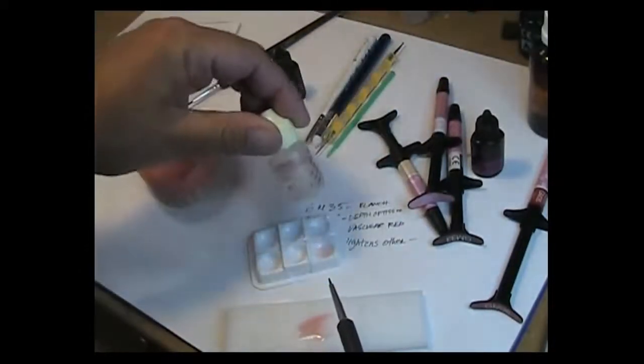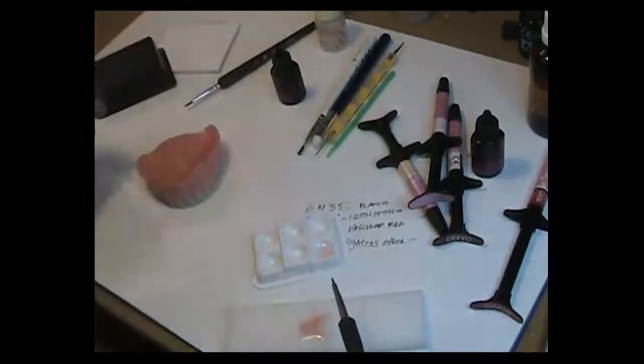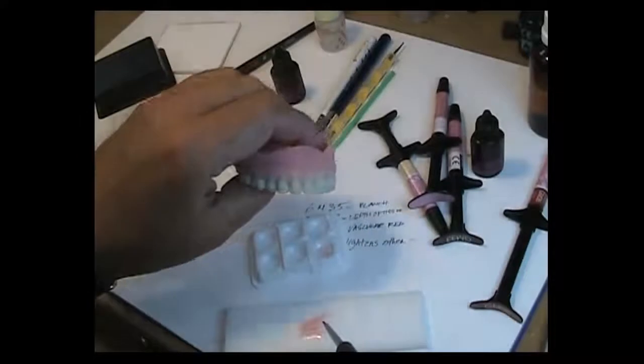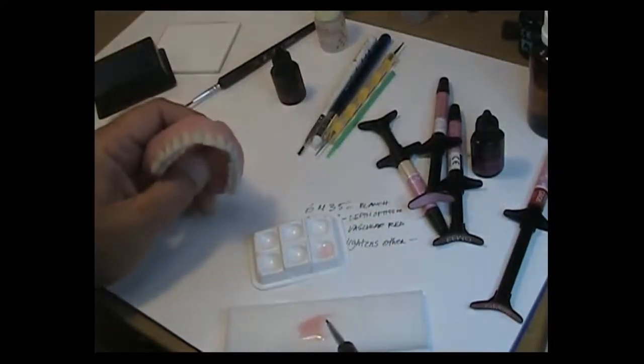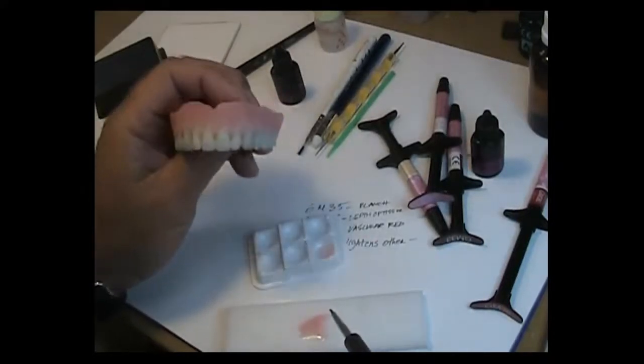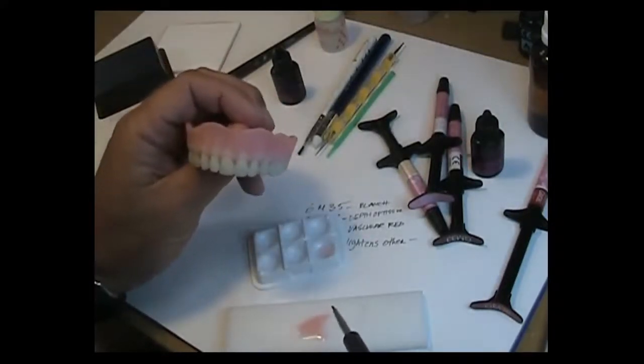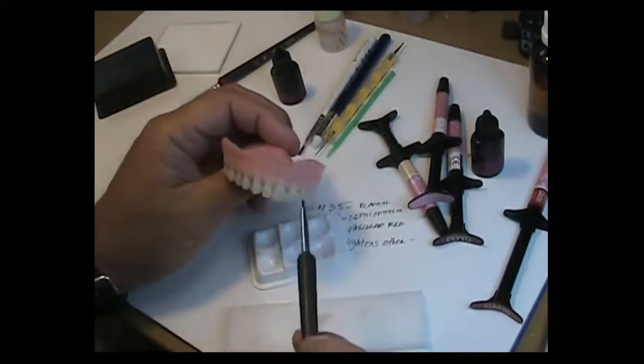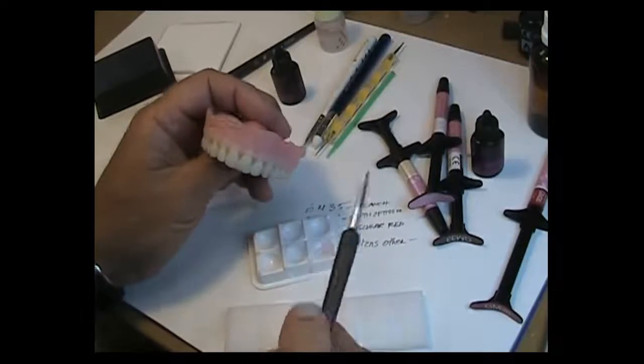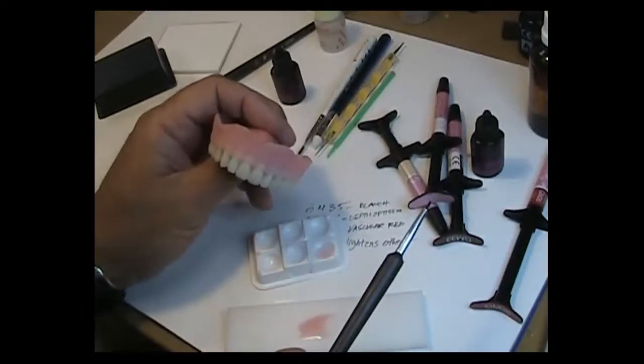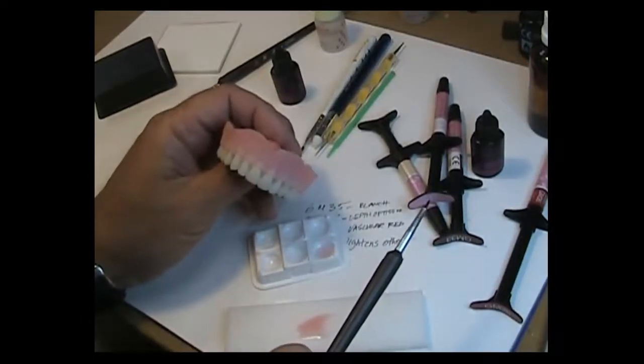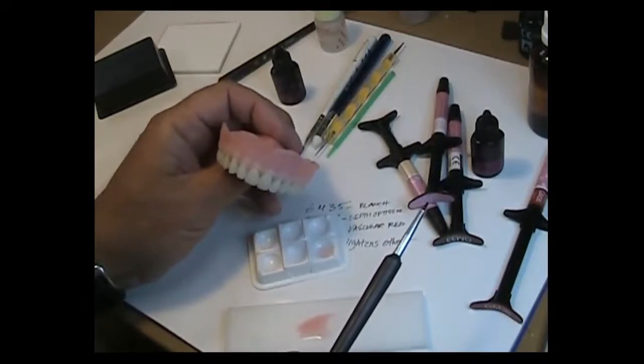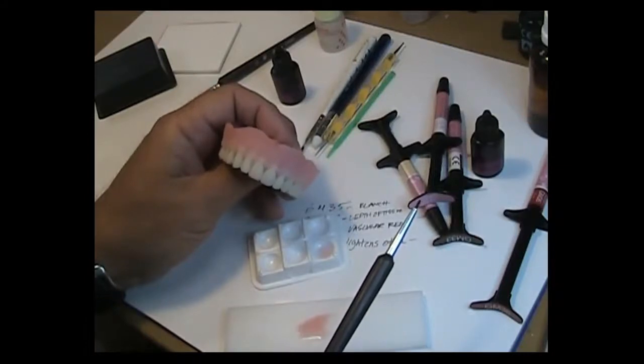Oh you're also going to need an air barrier. An air barrier is a product that you use on top of your coloring agents before you final cure. In other words, you can cure your applications in 30 to, I should say 15 to 20 second stages to stiffen it so it doesn't run. But in order to final cure, once your colors are in place you'll use the air barrier and you'll cover your entire denture with that air barrier wherever you've added the composite. And then you'll run a three-minute cycle in the labolite in order to set the material and cure it final. You might even run two segments of three minutes or six minutes total.